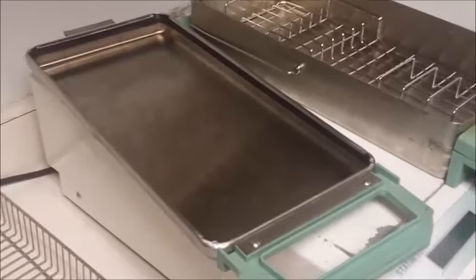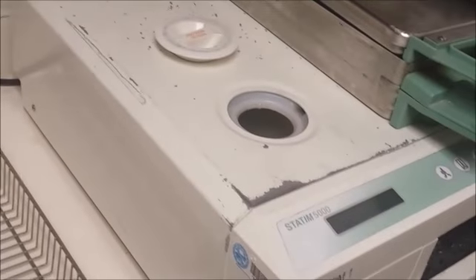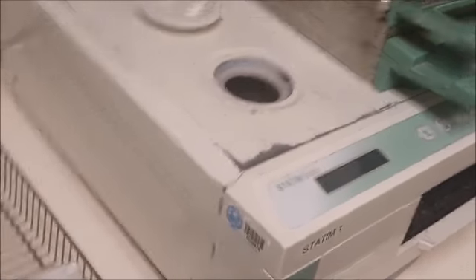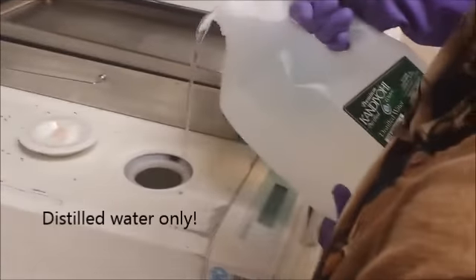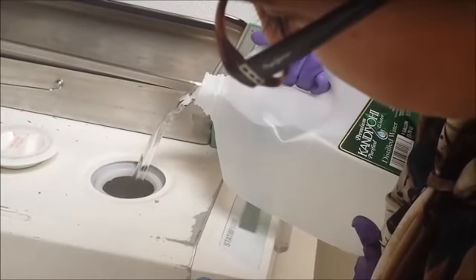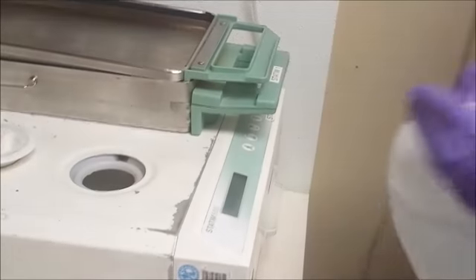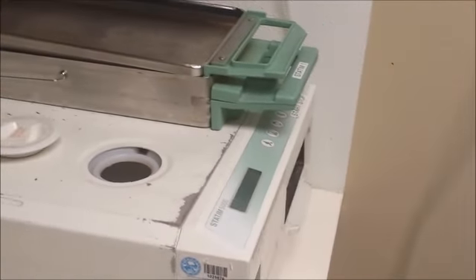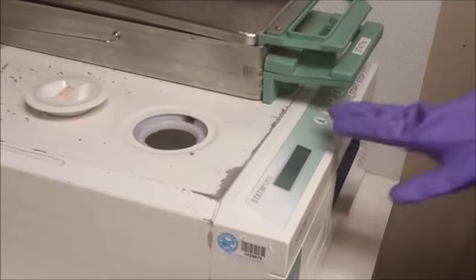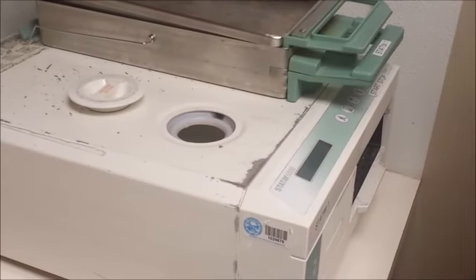When filling the water reservoir, you must use distilled water. Simply take the jug and carefully pour it in, almost all the way to the top. You should check the water level before you run a cycle. Sometimes when you select a cycle, you'll get an error message telling you there's not enough water, and you will have to add water at that time.